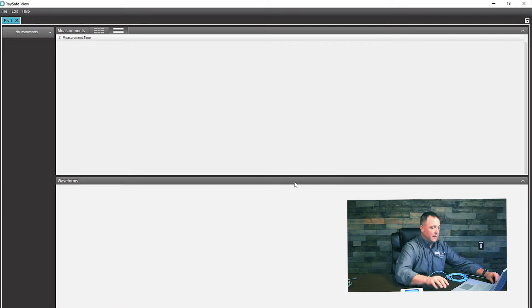So we'll go ahead and close that out and disconnect this. Now when you send out any of our sensors, the sensors house their own firmware and software updates. So the next thing we have to do is connect this to the base unit. We're going to go ahead and connect our USB cable to the sensor port, and now connect the sensor to the X2 base unit. It's going to take a few seconds to install that firmware, and once it's done, we're off and ready to take measurements.